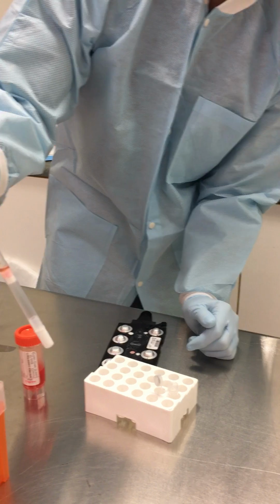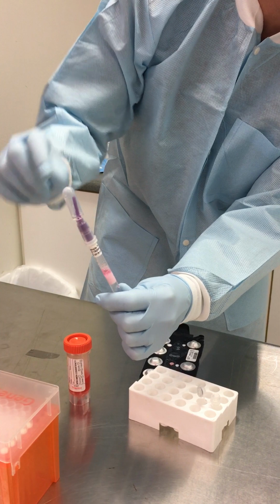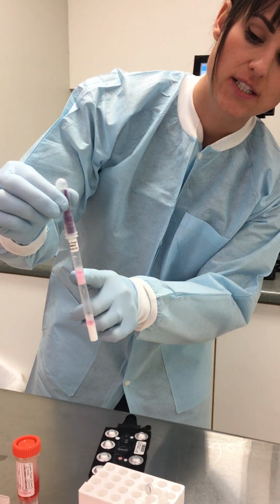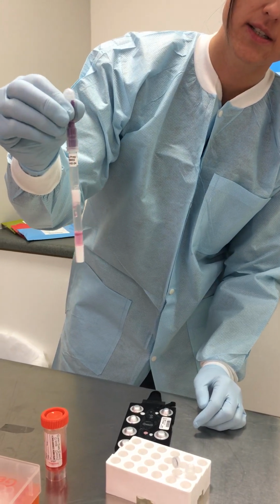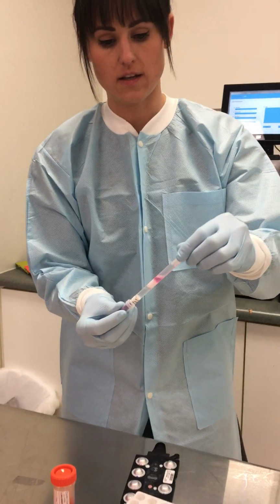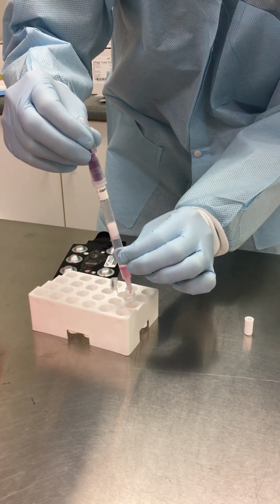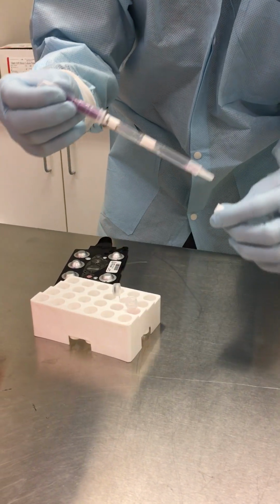The device is then capped, and there's a break cap in the top, and you just snap this valve and that releases the extraction buffer, which then rehydrates control sample that's contained on these frits, and it also filters the sample. You then just simply squeeze to move the specimen through the sample processing, and then the tip of the SPD contains a dropper tip. So then you elute by simply squeezing into the provided elution tube, and then discard of the SPD.